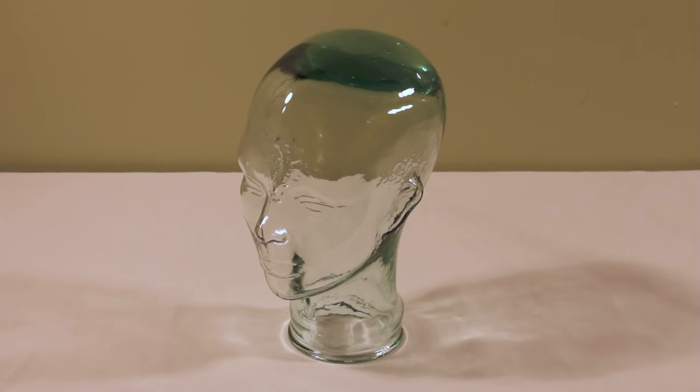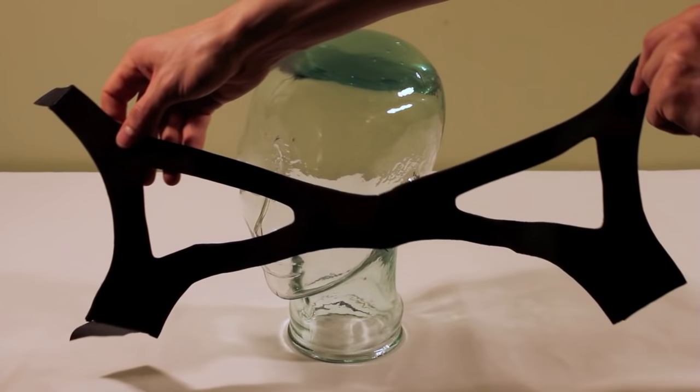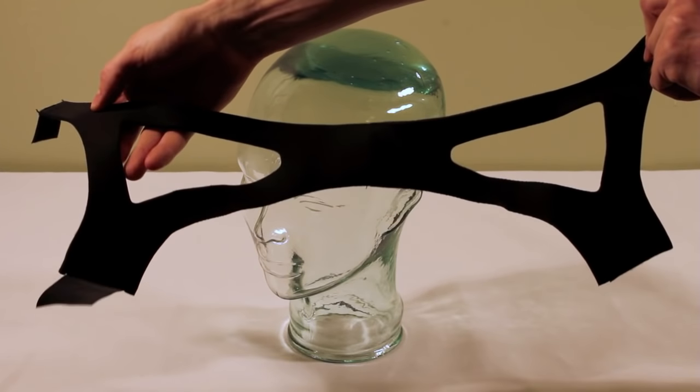To fit the sunset adjustable chin strap you will first want to make sure that you have the thin straps on top and the thicker straps on bottom.